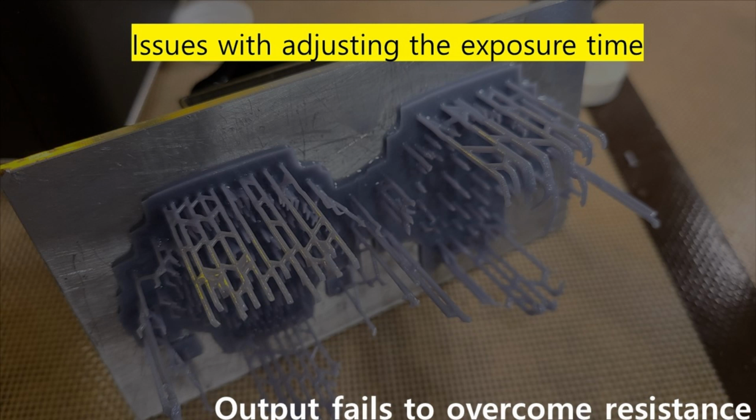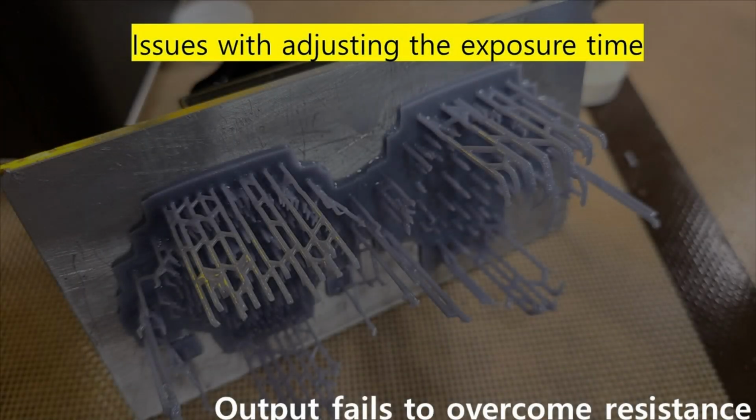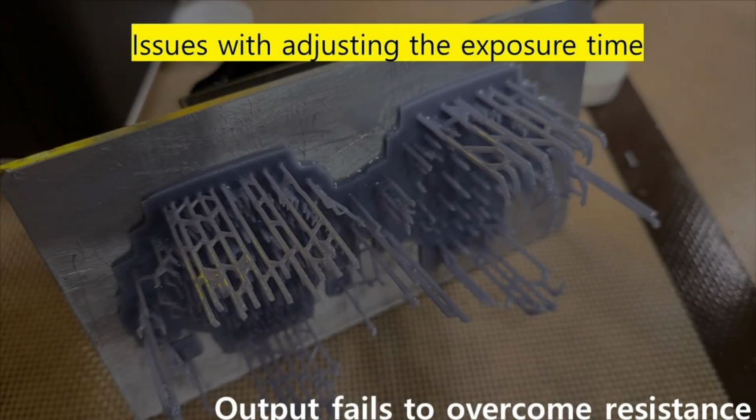This image illustrates the stability issues that can arise when reducing the exposure time in 3D printing. Lowering the exposure time can significantly destabilize the printed dental prosthetics, potentially leading to print failures. This is particularly crucial when producing precise dental restorations using 3D printing technology.